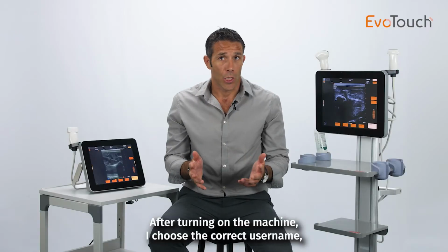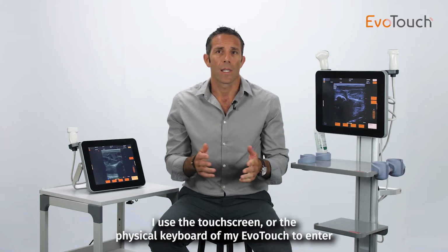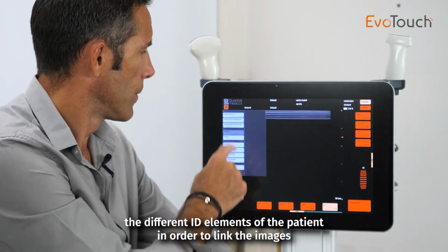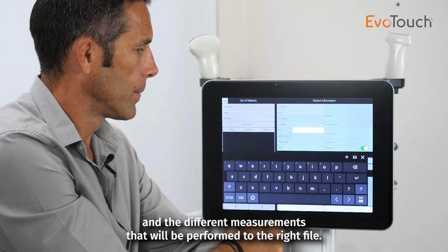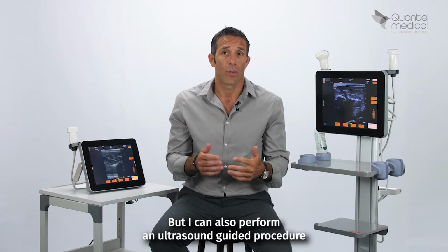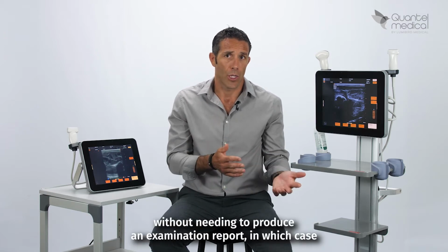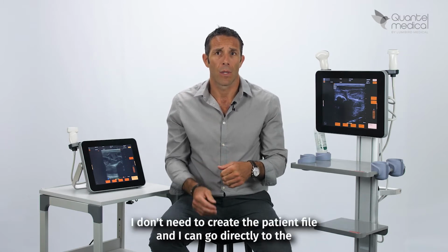After turning on the machine, I choose the correct username. I use the touch screen or the physical keyboard of my EvoTouch to enter the different identification elements of the patient in order to link the images and the different measurements that will be performed to the right file. But I can also perform an ultrasound guided procedure without needing to produce an examination report, in which case I don't need to create the patient file and I can go directly to the image setting step.